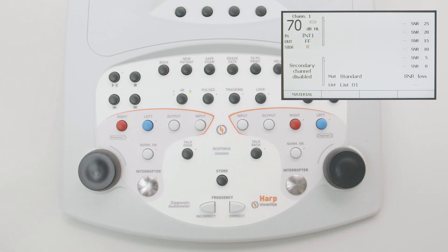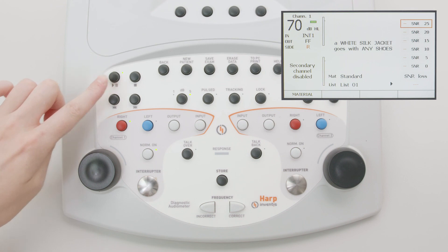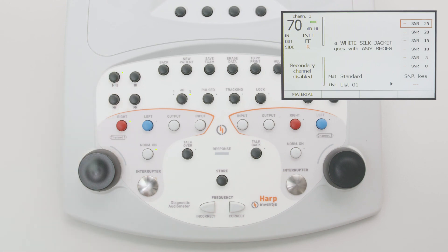The test is started by pressing the play button located at the top left of the keyboard. During the test it is possible to jump back and forth among the sentences on the list by pressing the previous and next buttons. Each sentence is presented at pre-recorded signal-to-noise ratios which decrease in five decibel steps from 25 — very easy — to zero — extremely difficult.